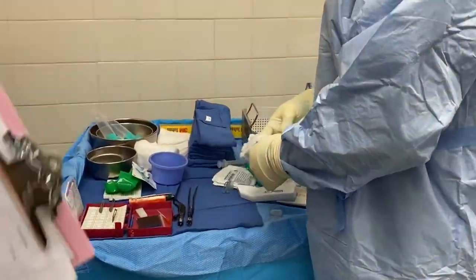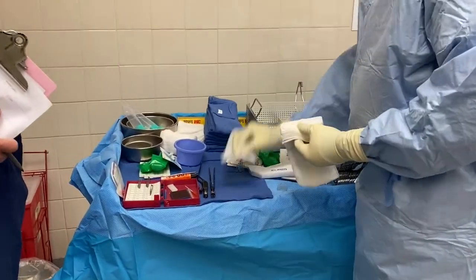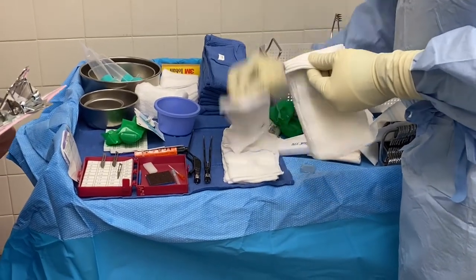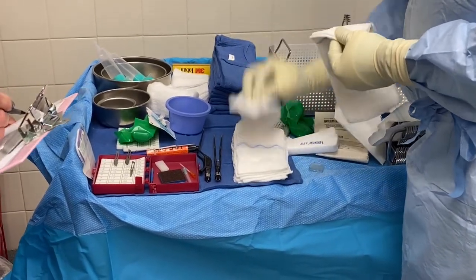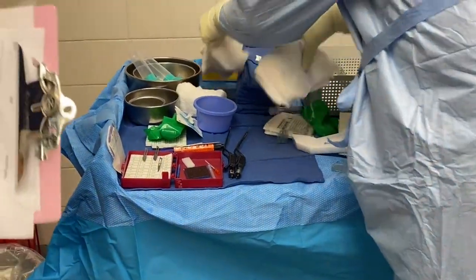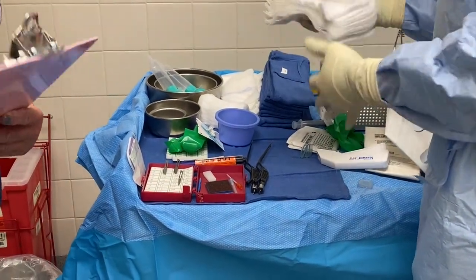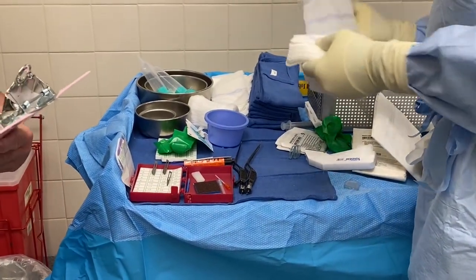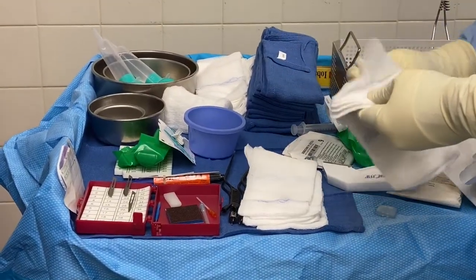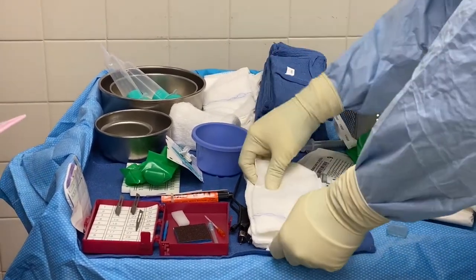Let the people see a good, proper count. That's one, two, three, four, five, six, seven, eight, nine, and ten. You separate them — that's the proper way to do it. We never count together: one, two, three, four, five, six, seven, eight, nine, and ten.